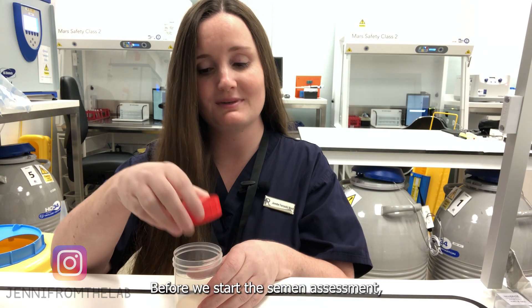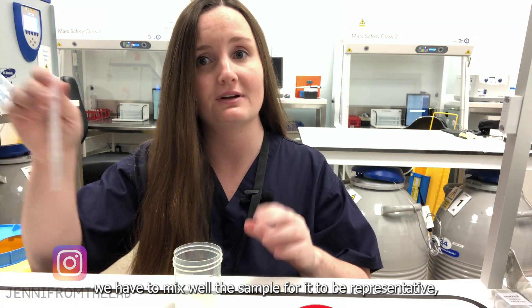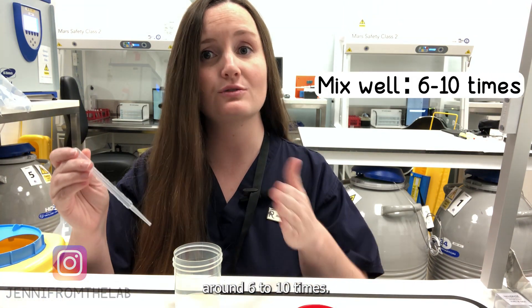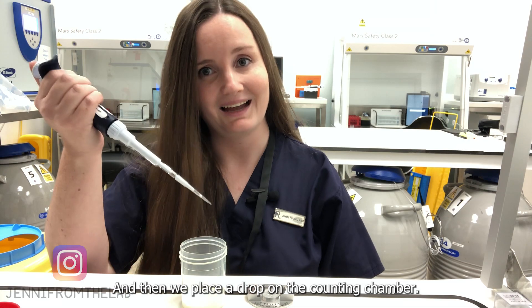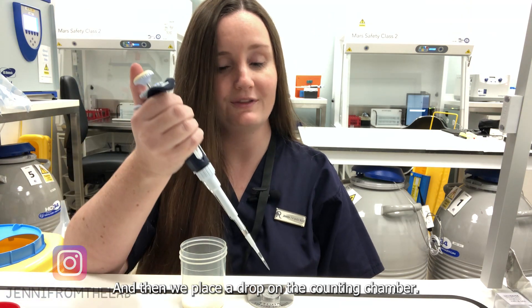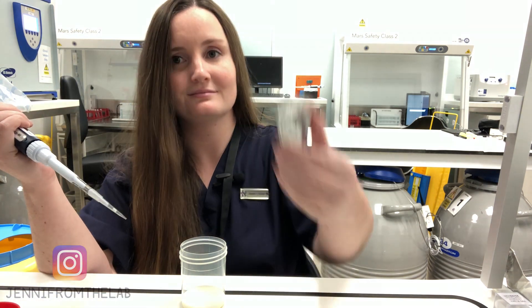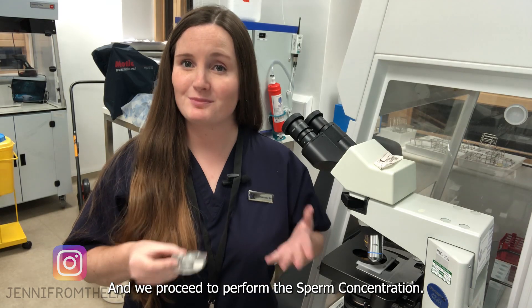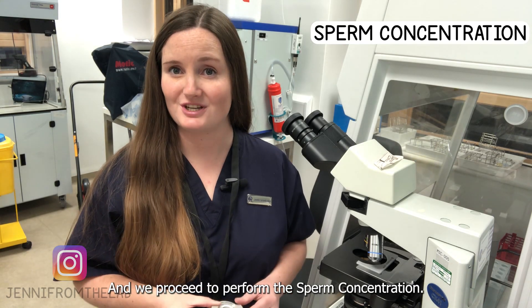Before we start the semen assessment, we have to mix the sample well for it to be representative — around six to ten times. Then we place a drop on the counting chamber and proceed to perform the sperm concentration.